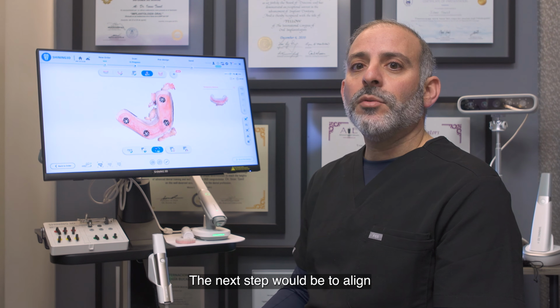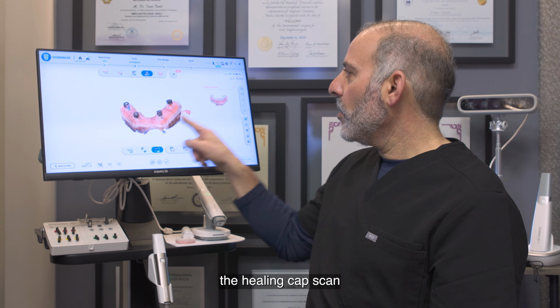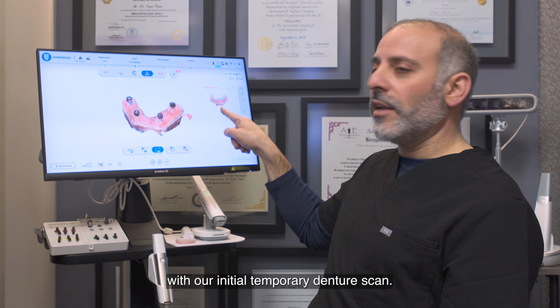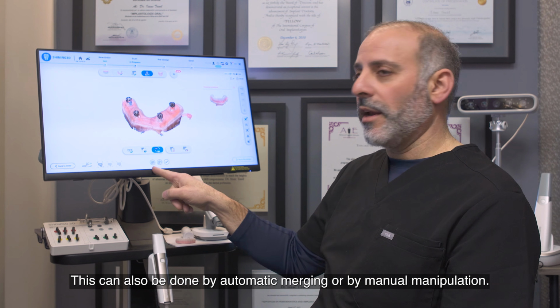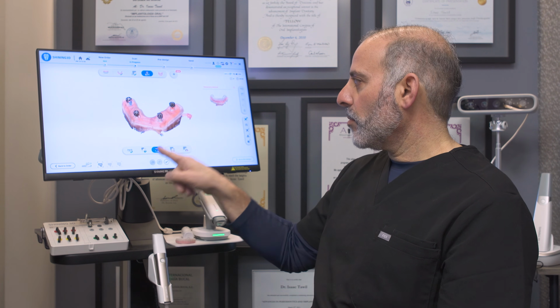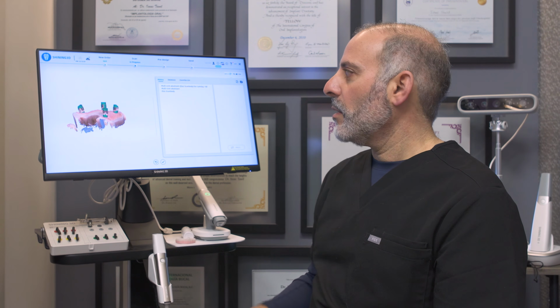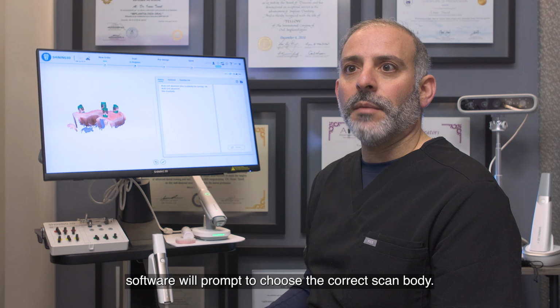The next step would be to align the healing cap scan with our initial temporary denture scan. This can also be done by automatic merging or by manual manipulation. Again, the software will prompt to choose the correct scan body.